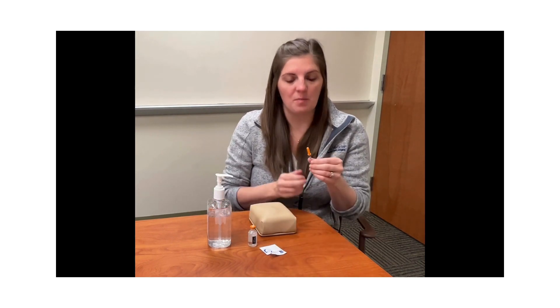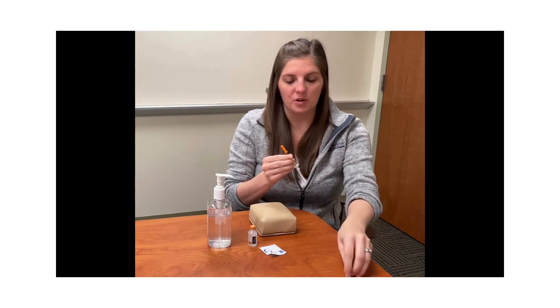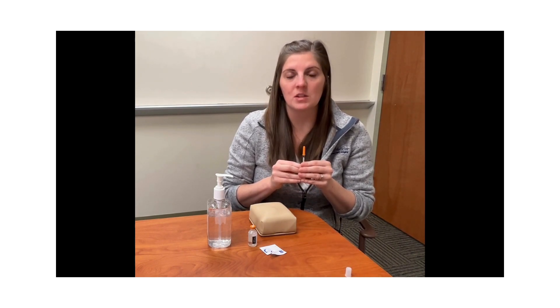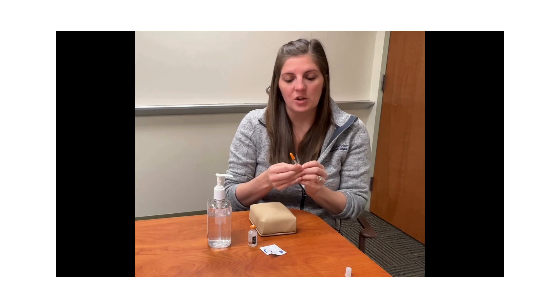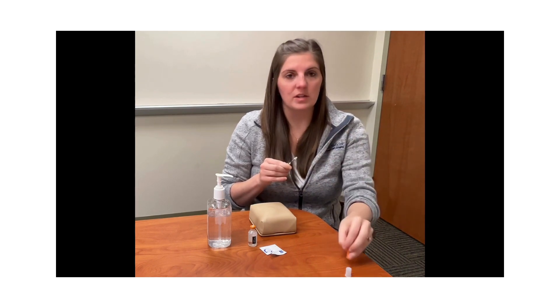At this point, pick up your syringe. At the bottom you're going to see a white cap — twist that off and underneath you will see a plunger. With syringe and vial, you want to make sure that you draw up the amount of insulin you intend to take, but you first draw up air in the total amount. For this demonstration we will be using 10 units, so pull the plunger back until you get to 10 units, then take the orange cap off and set that to the side.